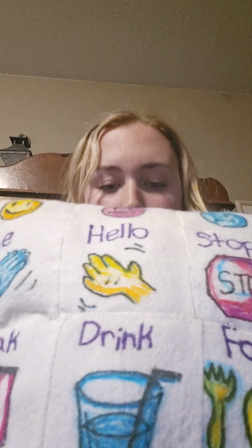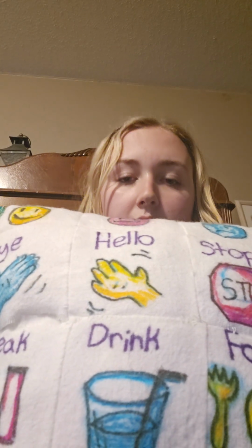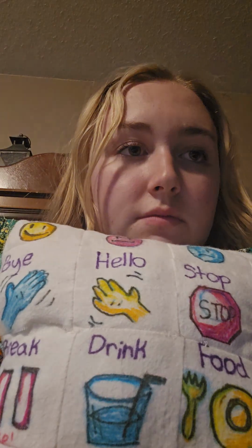So I'll walk you through how it works, how it can be used in the classroom, and how I envision training others to use it would look like, and also the special features that make it versatile and effective. So first of all, of course, it is a communication aid. As I previously went over, the commonly used words that are on it are ones that a student with communication needs may need to express quickly using a device that they have on hand.